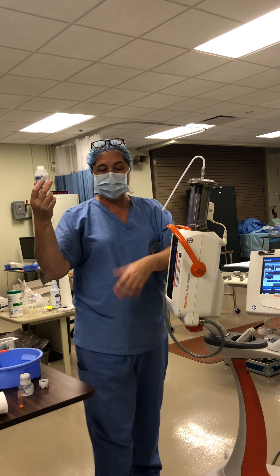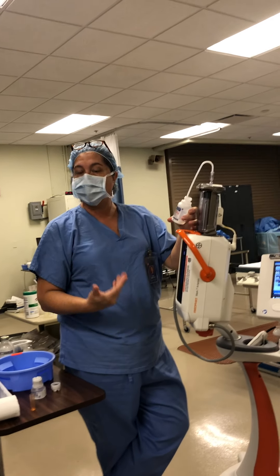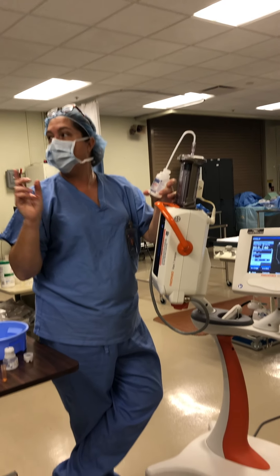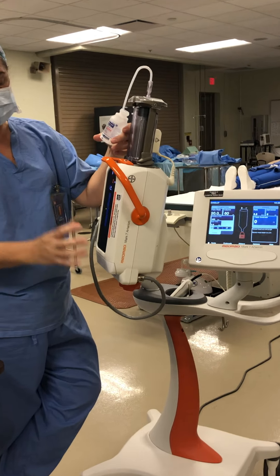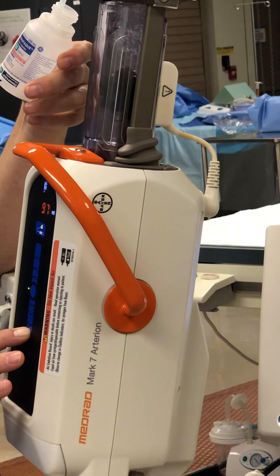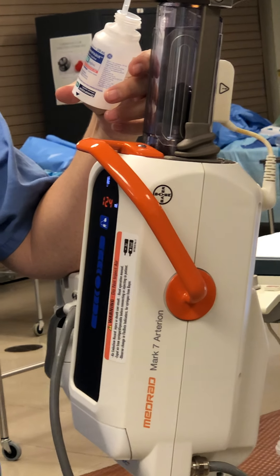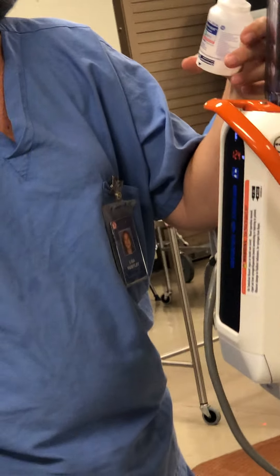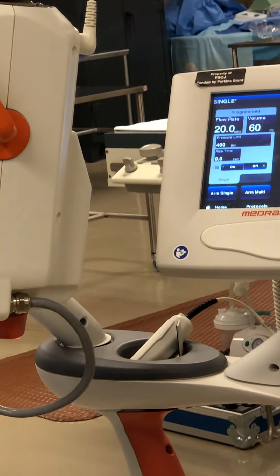Now I'm going to get my contrast and go ahead and stick it down in here and start drawing it in. I have to re-engage because this turns off after just a couple seconds if you don't do something. I'm going to show you what not to do first, and then the right way. If you engage and then start — look very closely at what happens when this fluid starts sucking in. What is being created? A bunch of unnecessary bubbles.